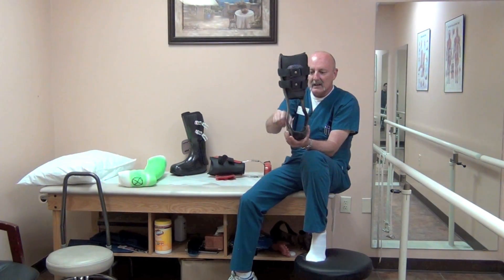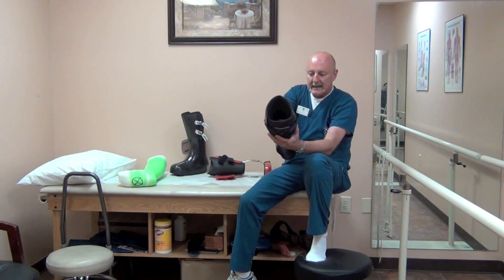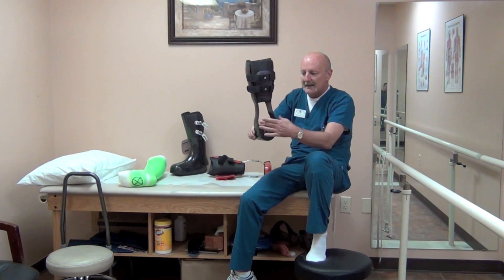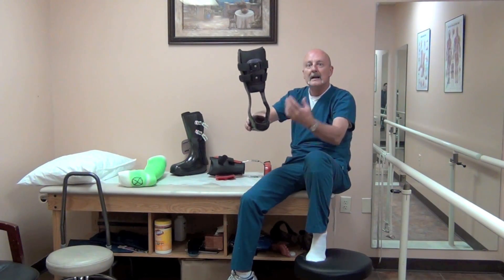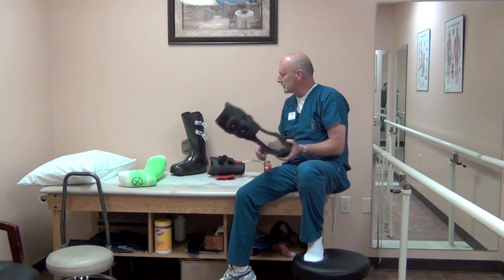There is necessarily a lot of gapping at the malleoli. It's not a concern as to function because they're going to be carrying the weight up in the calf and this will just be inside the shoe. It's just cosmetically not appealing — it looks like it's poorly made because of the gap — but that's the only way we can accomplish this. This is the ultralight version of the Load Shifter.